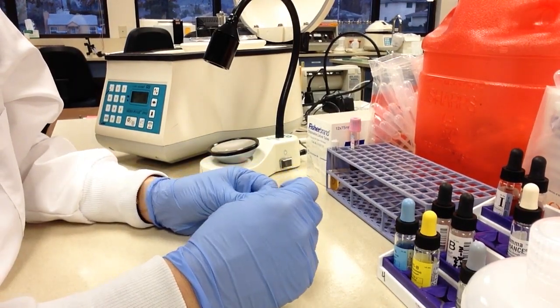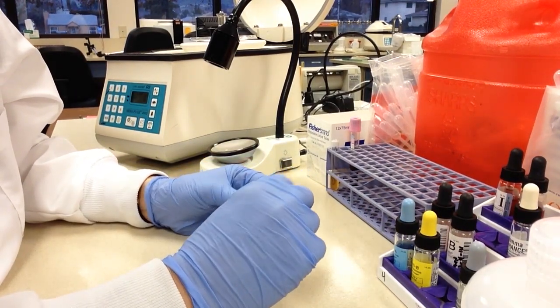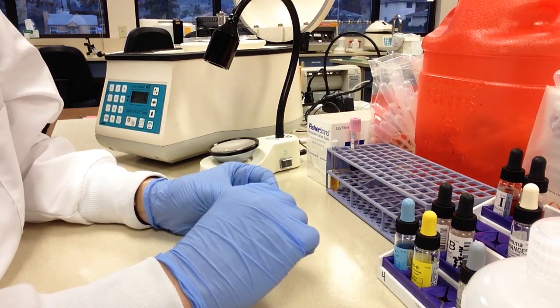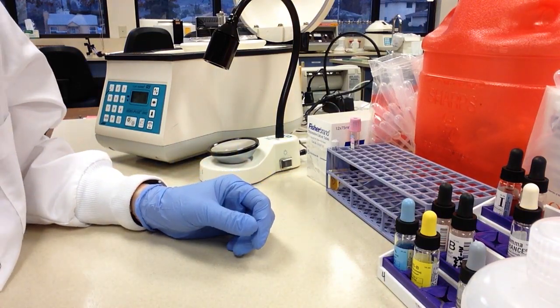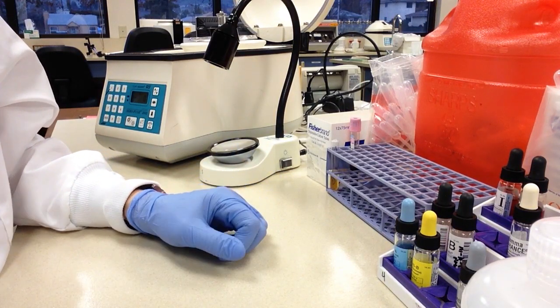In this video we are going to take a look at washing our red blood cells and making a three percent suspension for our blood bank tube testing.